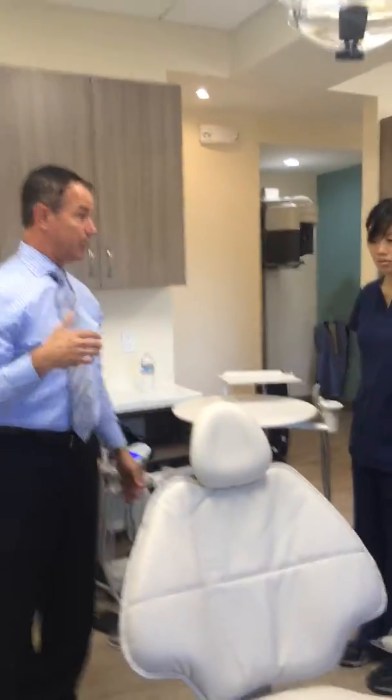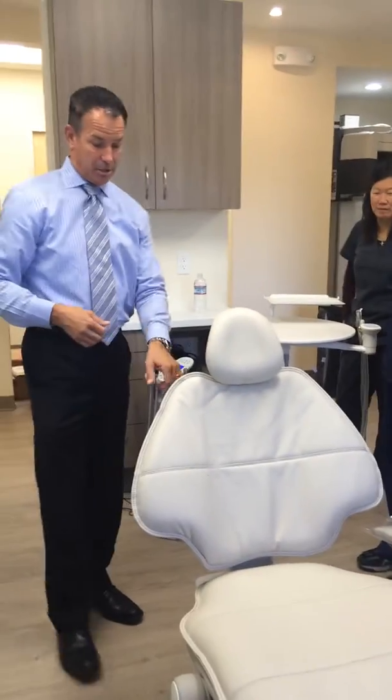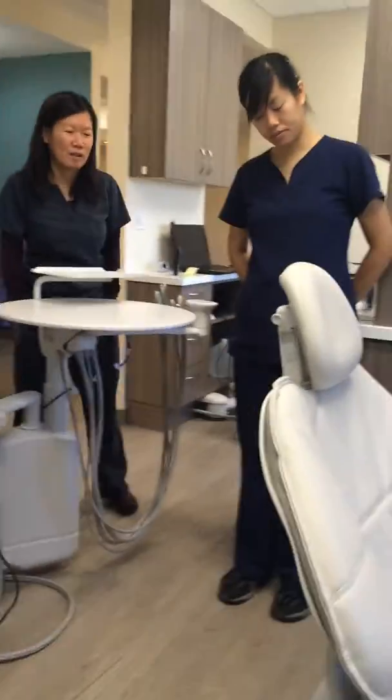So that meant that every time you positioned a patient, they always slid down the chair and you always had to have them slide back, right? So this chair, if you look on the back, it's got what we call, right here, this curve. It's called a virtual pivot, okay?